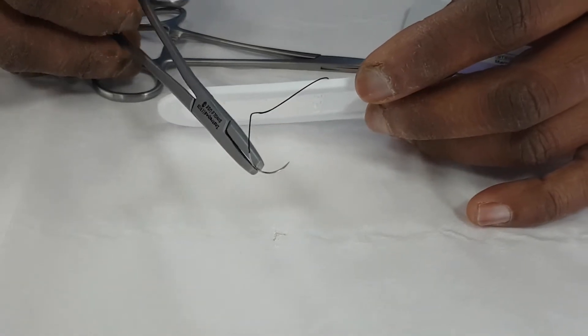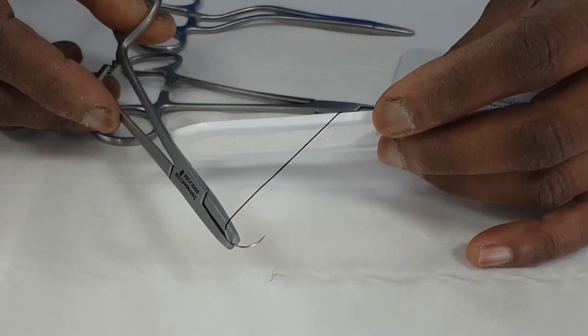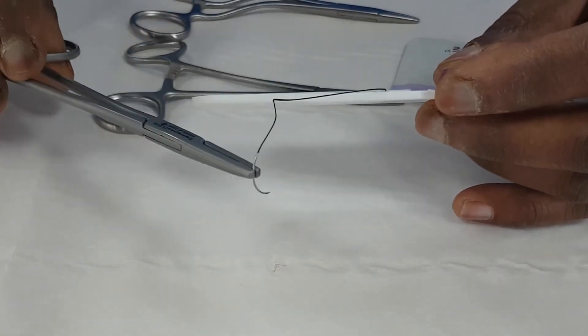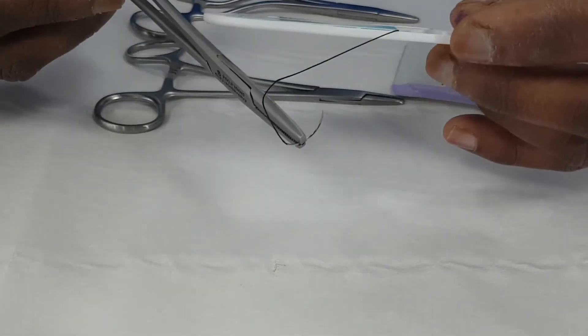When you do that, it means that you've actually got the stitch in the needle holder in the right place for your wrist and your fingers to actually do the work.